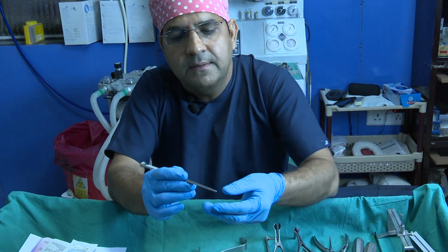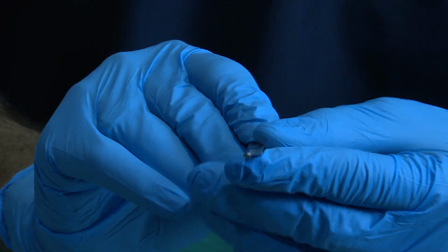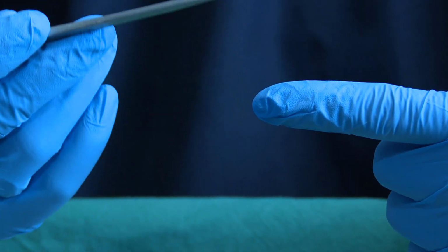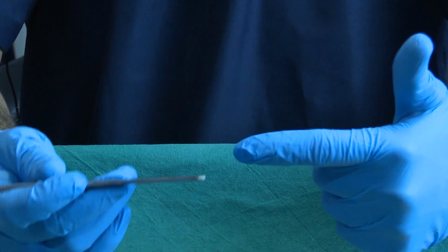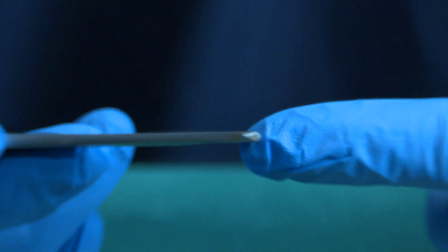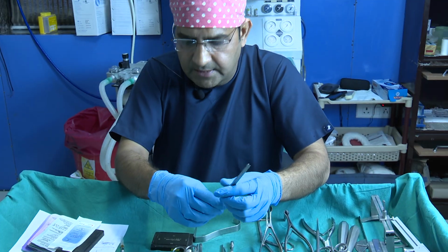But the important thing when you engage it: look, one is the guarding end and this is the cutting end. The important thing for my junior colleagues: suppose this is the lateral nasal wall, when you engage it at the lowermost part of the piriform aperture, or according to your pattern of osteotomy, either high or low to low, you engage like this. So the cutting end is inside and the guarding end is outside. When you use the left side, you use it like this, and when you use the right side, you use it like this. So this is the advantage of this straight one.